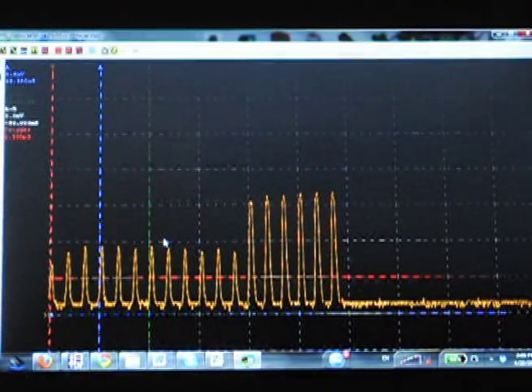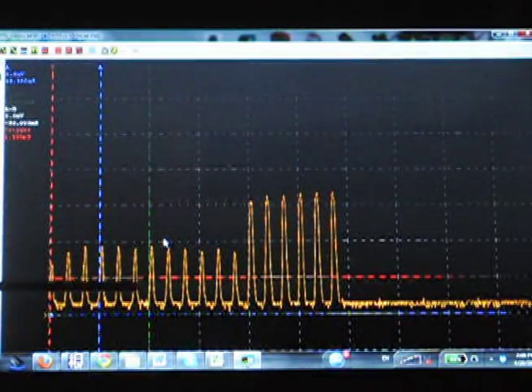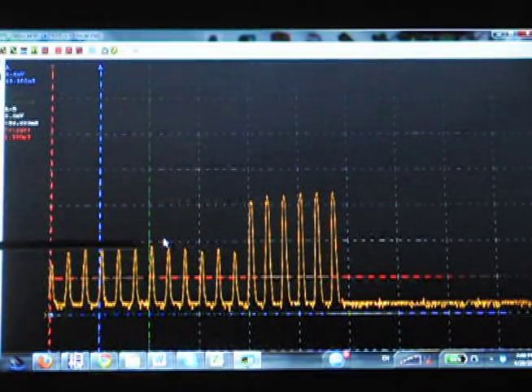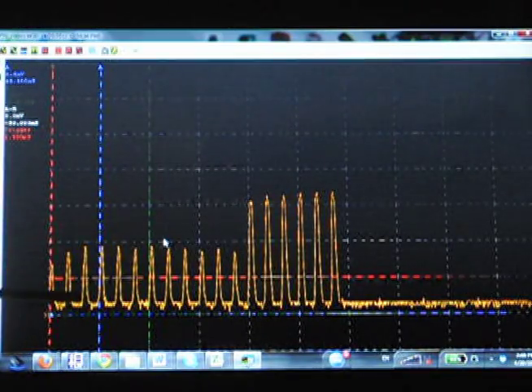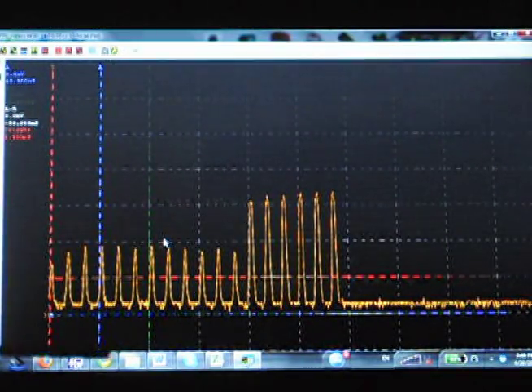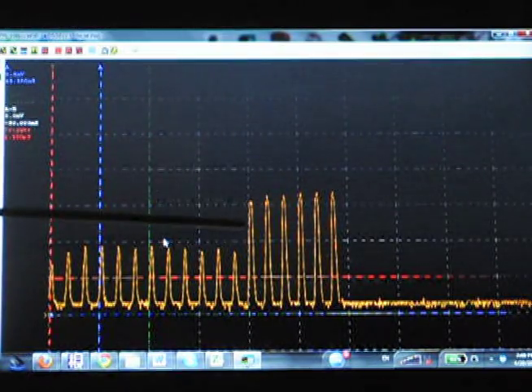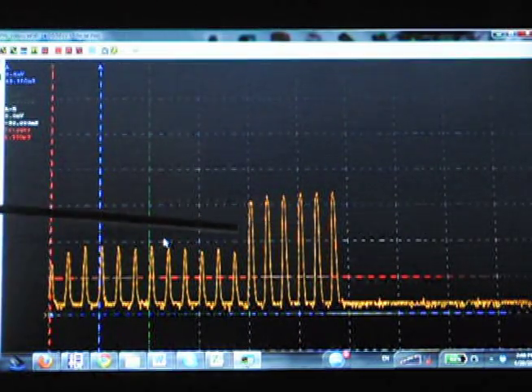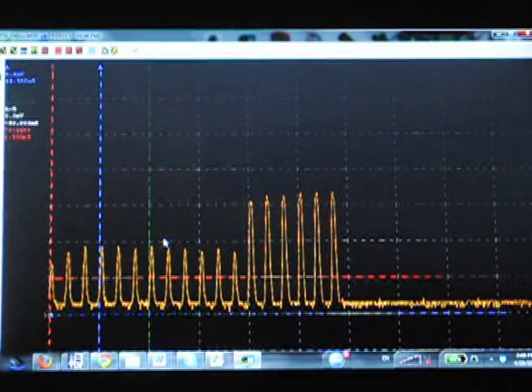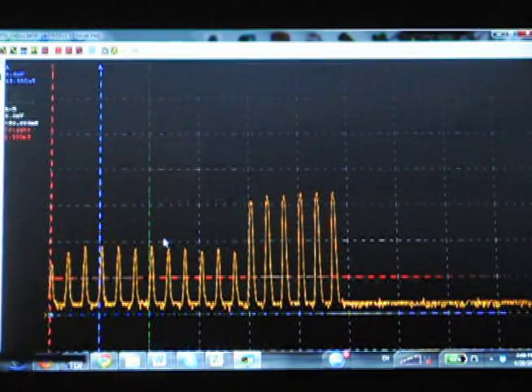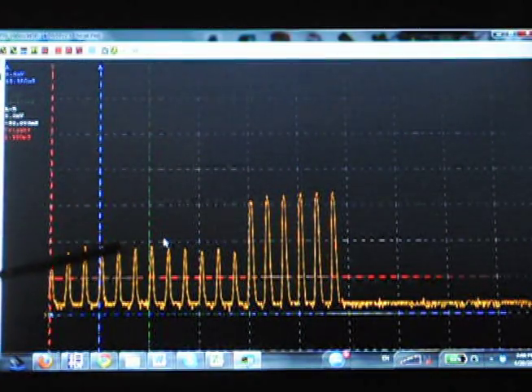Okay, we just took an exposure at 100 milliseconds, and this is the resulting trace. You can see that we still have that issue with the high preheat, or we're getting an actual x-ray exposure during preheat, and then here's your actual x-ray time, and you can see that that's just about 100 milliseconds.